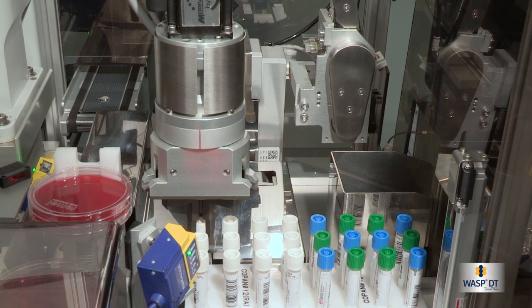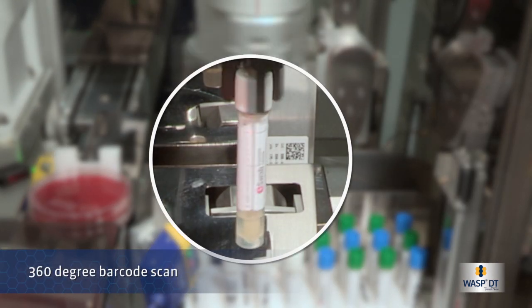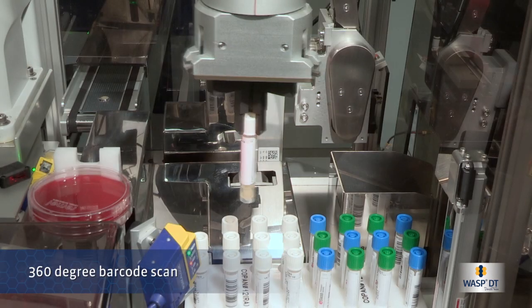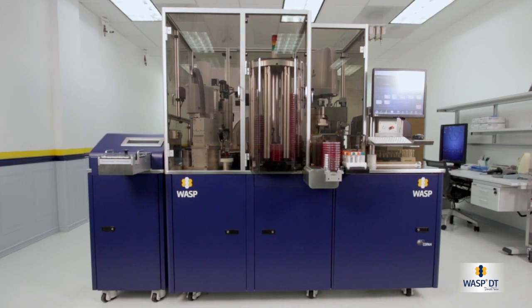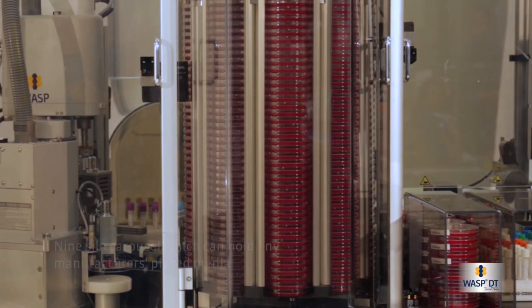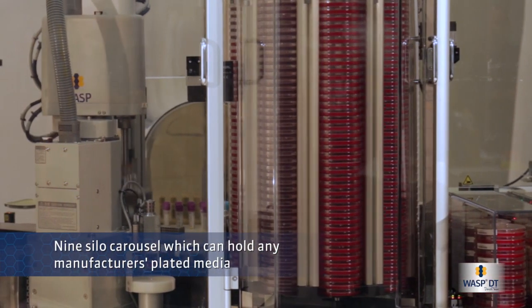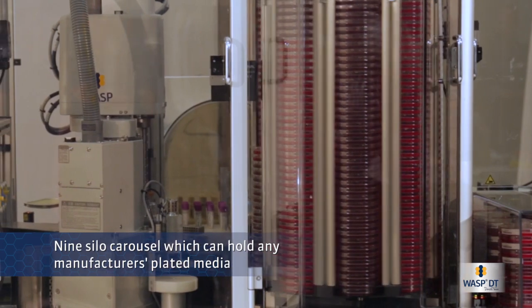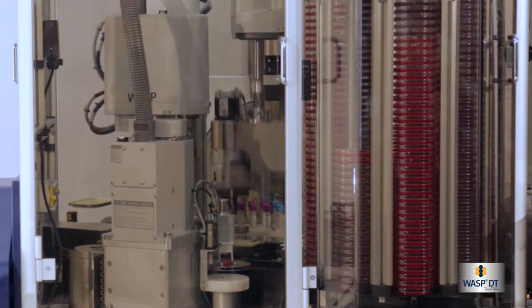The sample is presented to a barcode reader, and WASP queries the LIS for processing instructions. The system then chooses plates from the nine-silo carousel, which can hold any manufacturer's plated media.